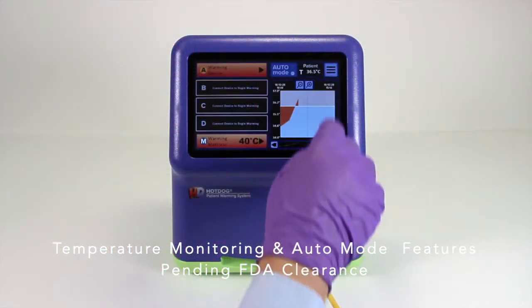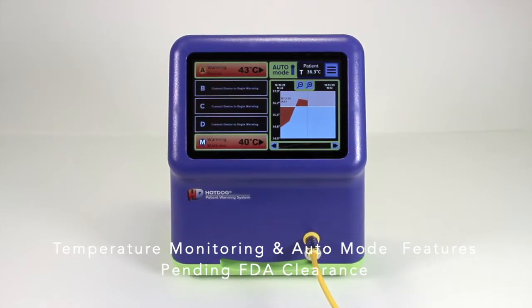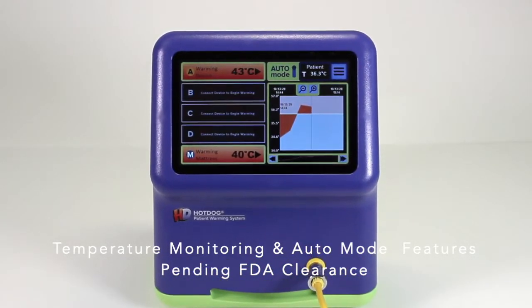Safety requirements only allow auto mode to function if the patient's core temperature does not change by more than one degree Celsius within a one-minute period of time and is within an established human temperature range. These important safety criteria ensure that auto mode is not used if the temperature probe is improperly positioned or not in the patient.